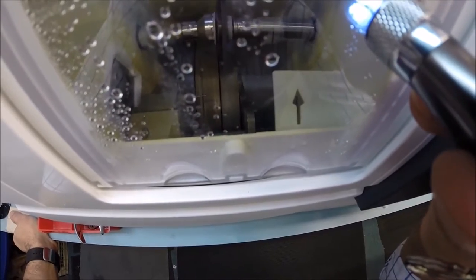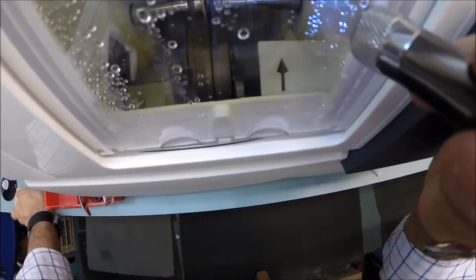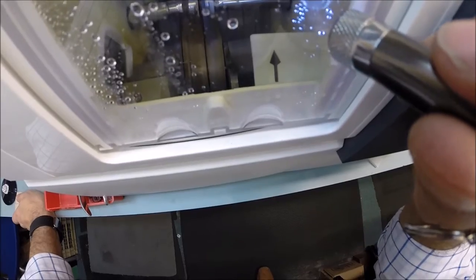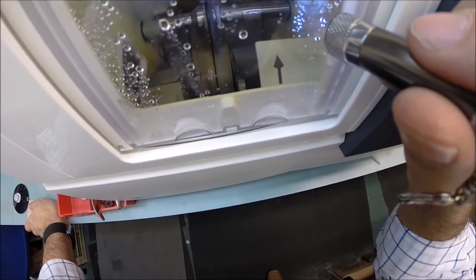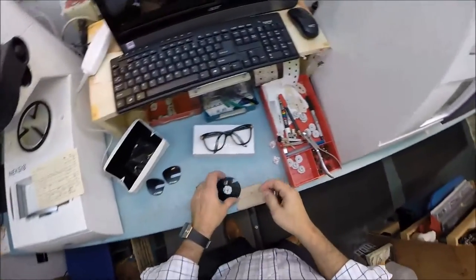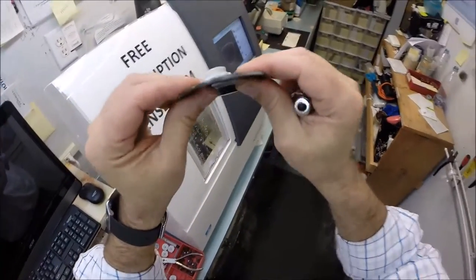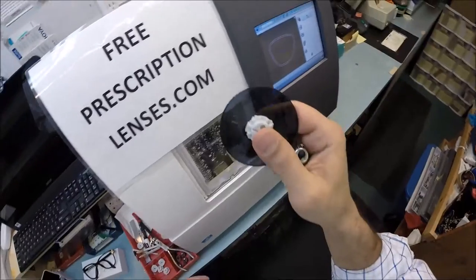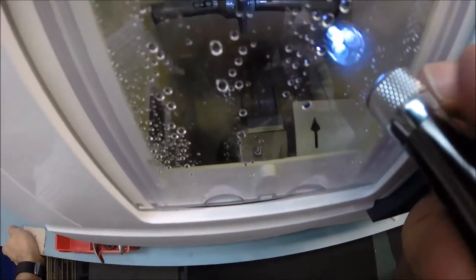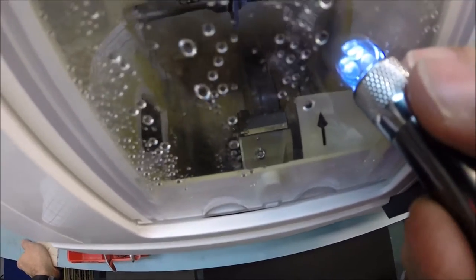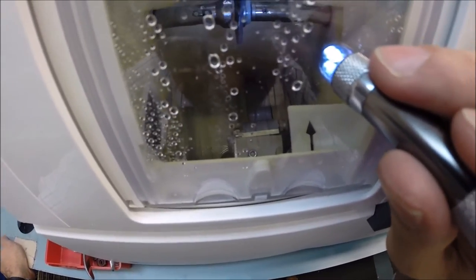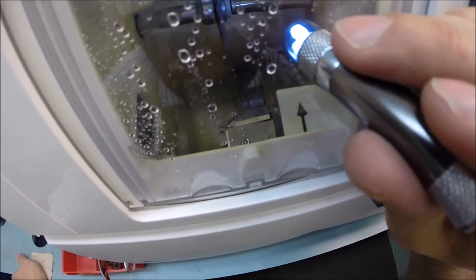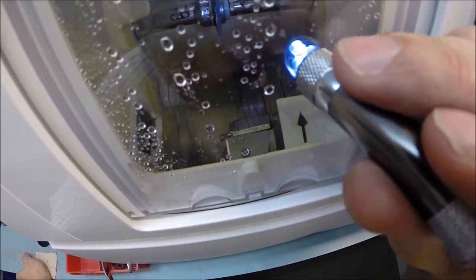If you see that flickering in the back, that's water running. Polycarbonate cuts dry where plastic and high index lenses cut wet. Water is running to collect the optical sawdust while cutting. Your lenses are polycarb - 40% thinner and lighter than regular plastic, virtually unbreakable, bulletproof up to 22 caliber, and has both UVA and UVB protection built in. You have permanent sunscreen for your eyes that never needs to be reapplied.